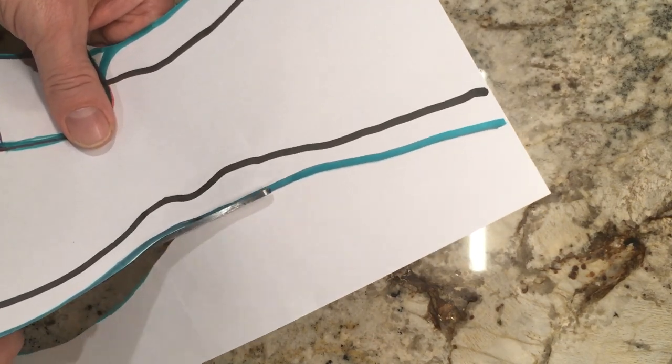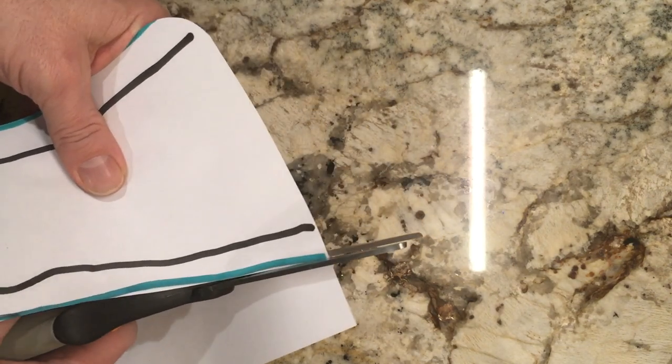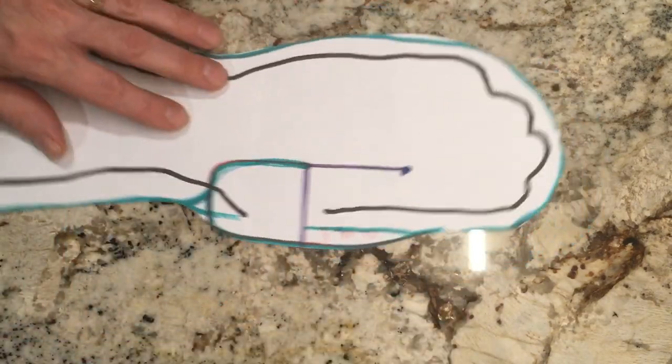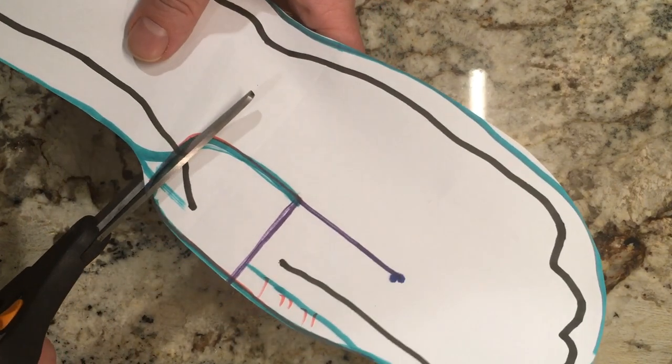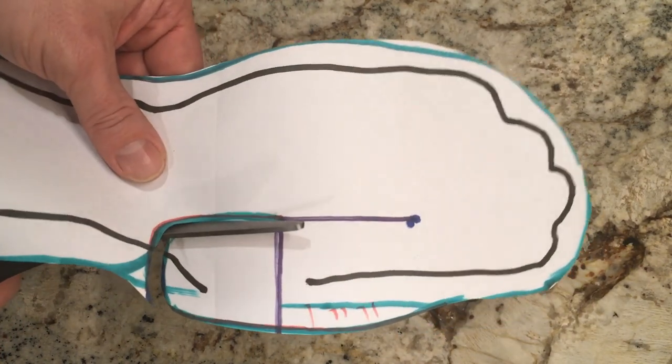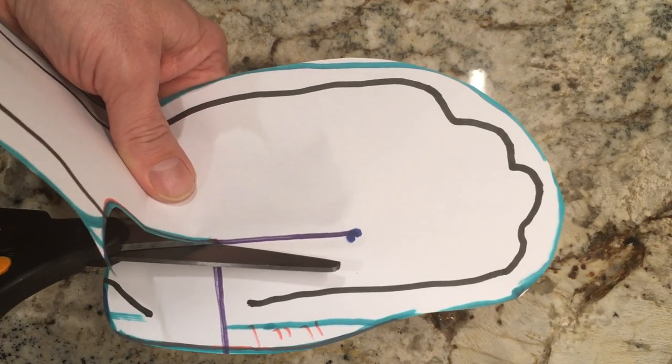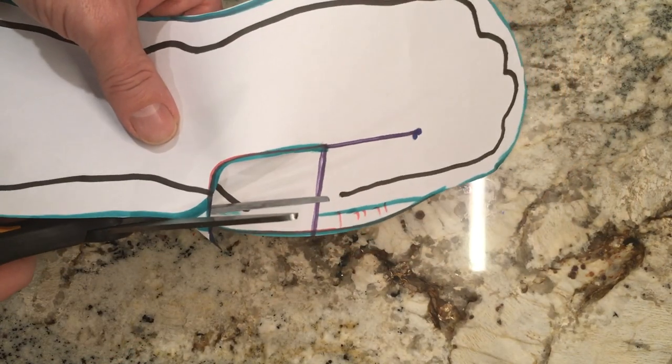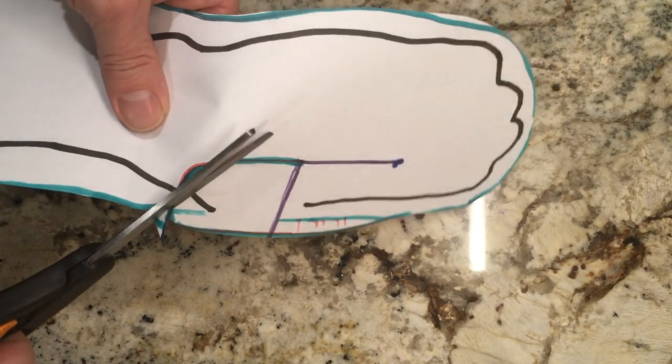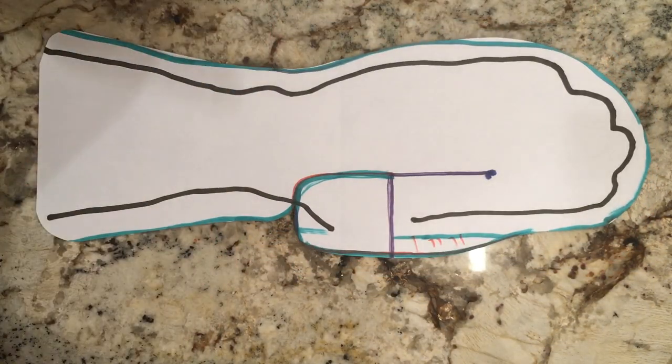When you're cutting, if you feel like you drew a little too close or a little too far and didn't get it quite even, you can just fix that while you cut it. And so that's our pattern more or less. And then we can go back and cut out this little thumb piece here, just go up to right where that line from the thumb MCP joint was. And then again I'm just going to cut around this to get rid of that funny sharp little corner, and that is our pattern.